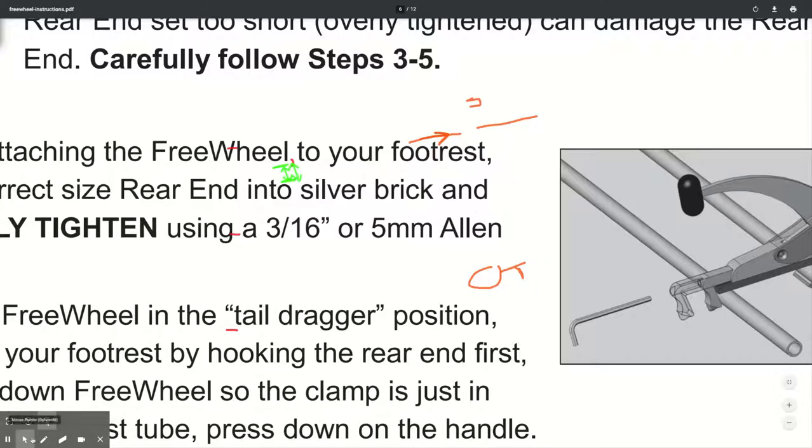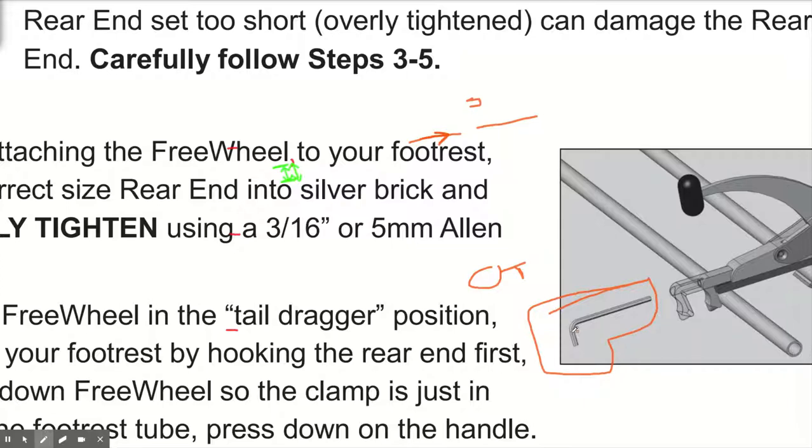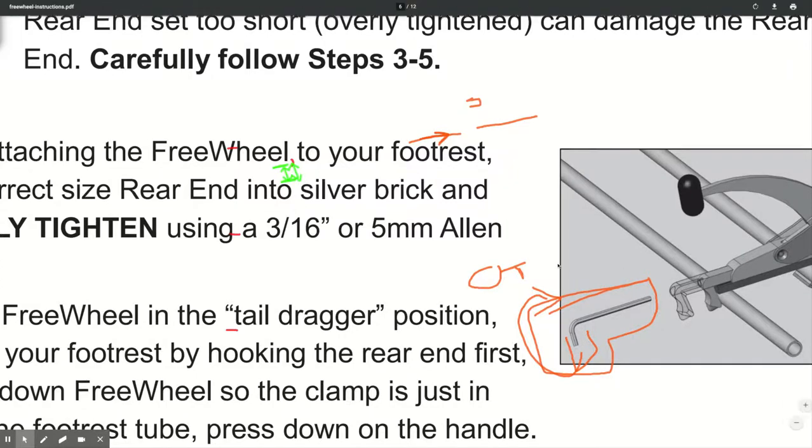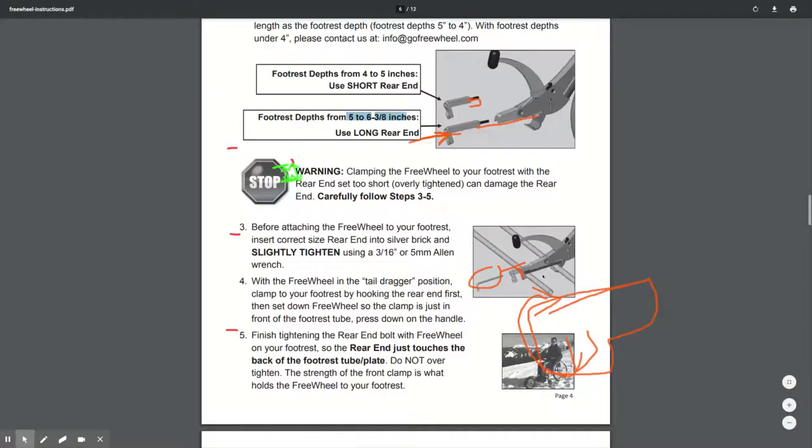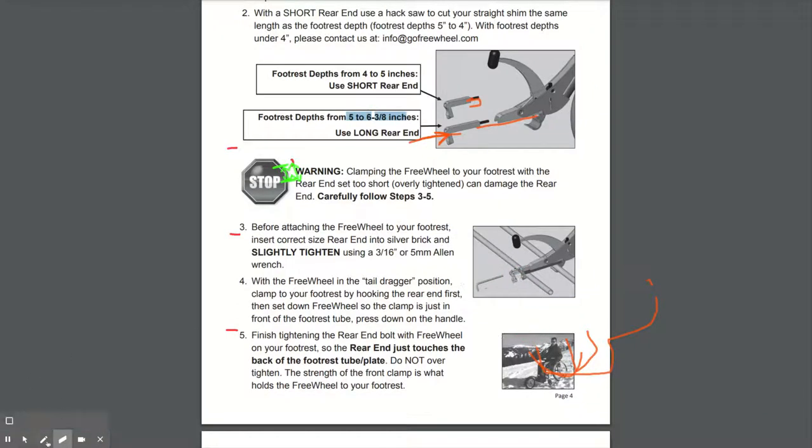So what you may actually need to do when you're tightening this by hand is use a spanner or a pair of pliers to give you some extra force on this Allen key when you're turning it so that you can get it all the way in. And it does feel as though maybe that you're cross threading it, but you're not, you're just getting past this lock nut in order to get this tight.